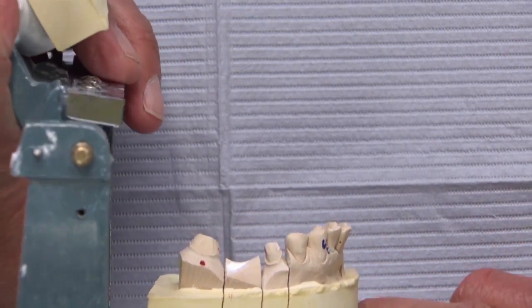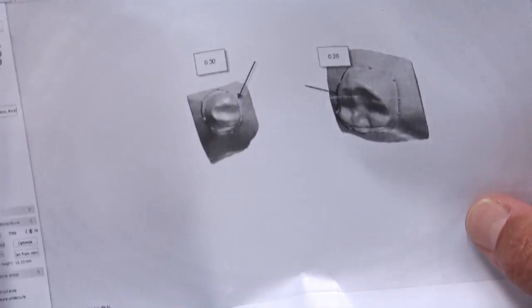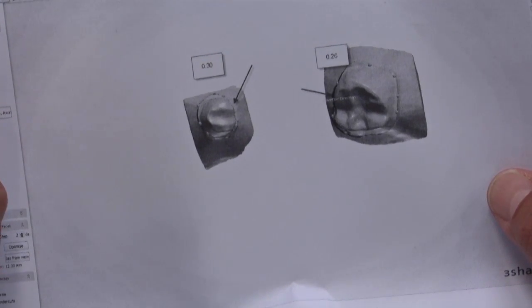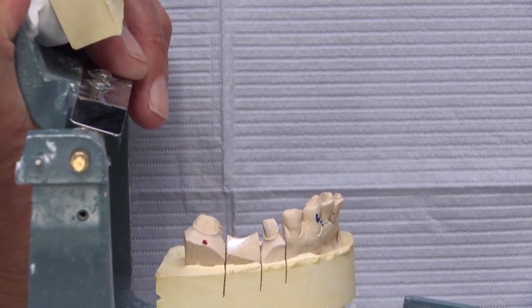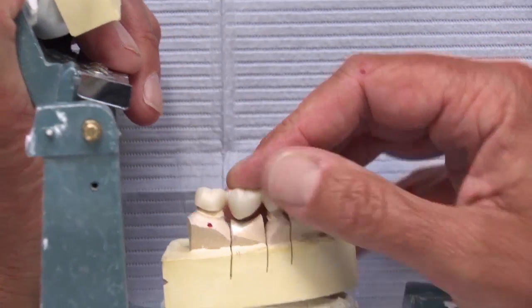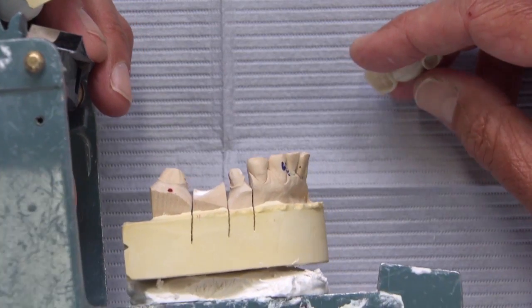Here's another bridge I grabbed — this one has the more typical mesial tilt of the lower molar, plus a distal tilt of the second bicuspid. When we look at the scan, we see a 0.26mm undercut on the mesial of the molar and a 0.30mm, or 300-micron, undercut on the distal of the bicuspid. The undercut areas are marked on both abutments, and it would take so much grinding that there's just no way it would work.